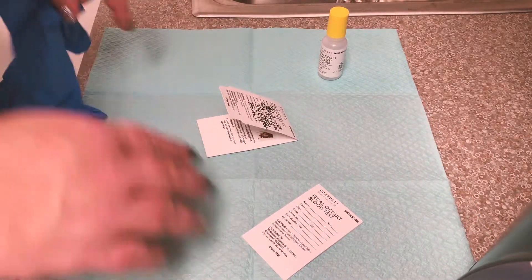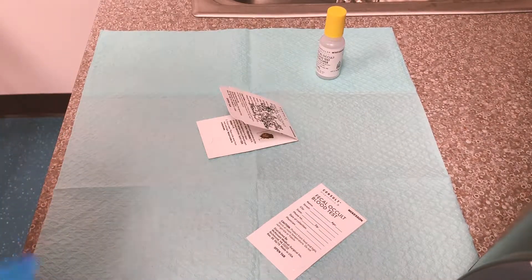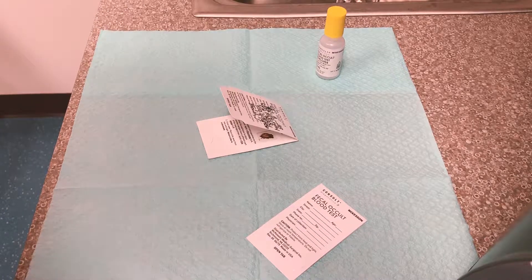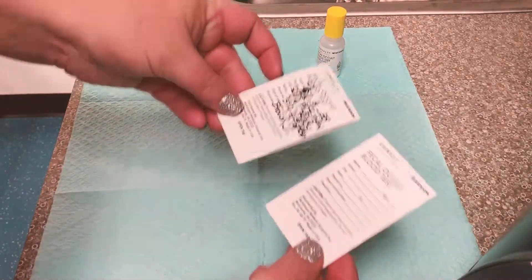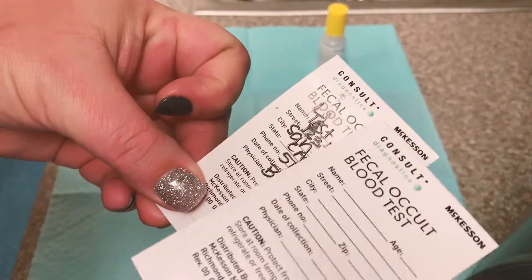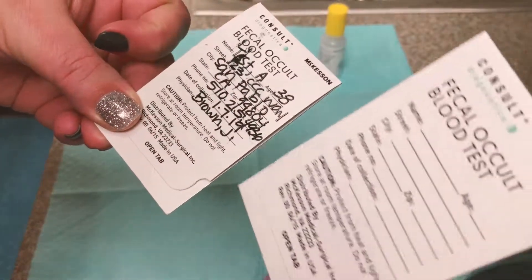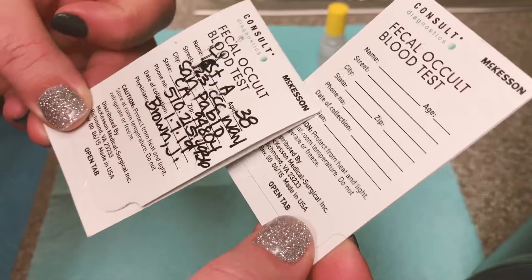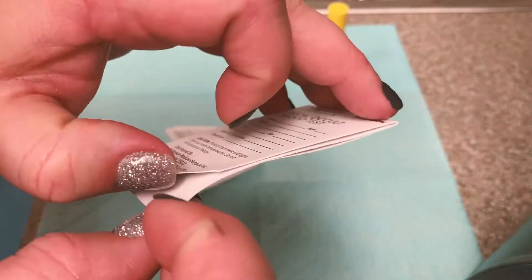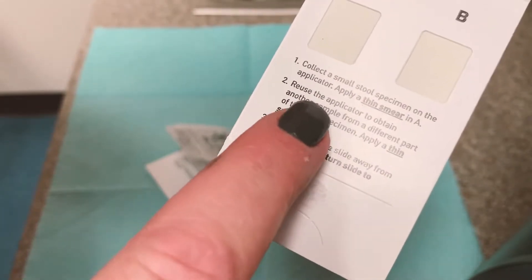This is how to perform the fecal occult blood test on the sample cards. When you give the cards to the patient, you will give them written instructions. Most of the time patients will get three cards. You are going to have them complete their demographic information on all three cards, and then they will place a thin smear on the inside boxes — the A and B squares.